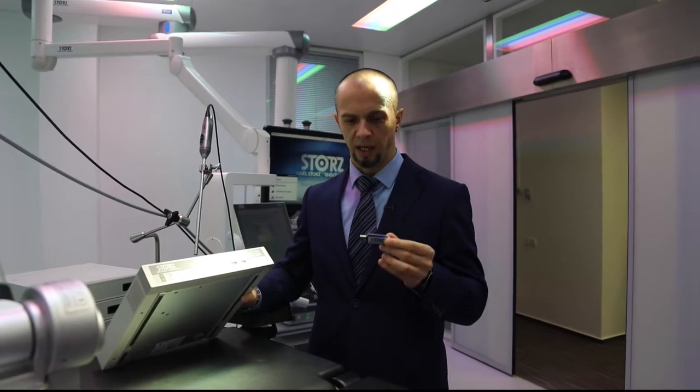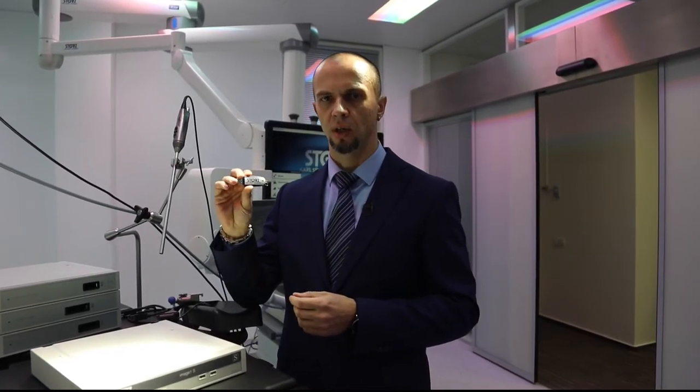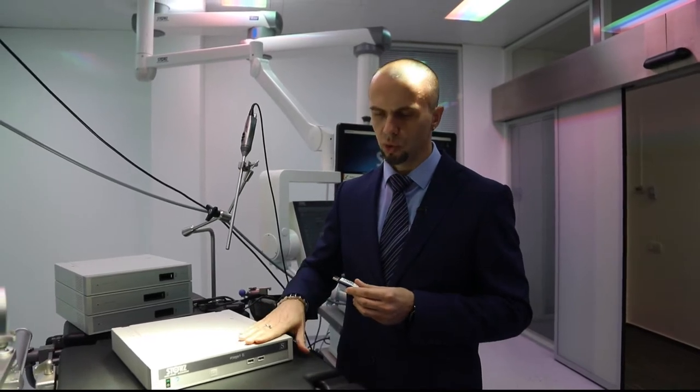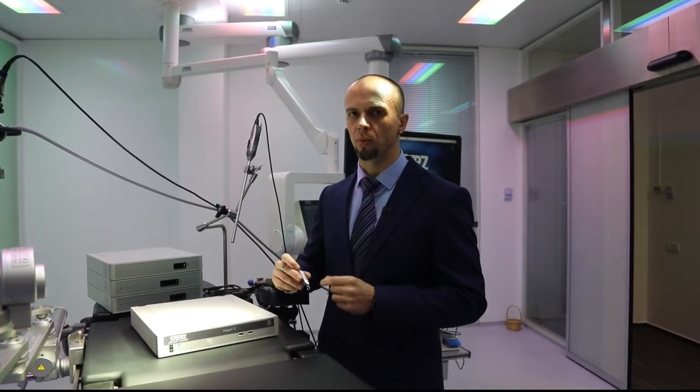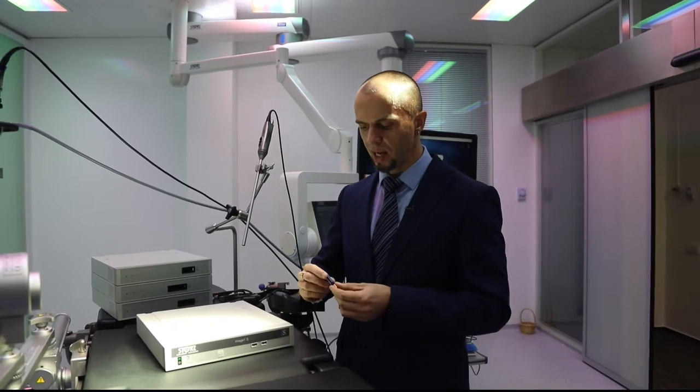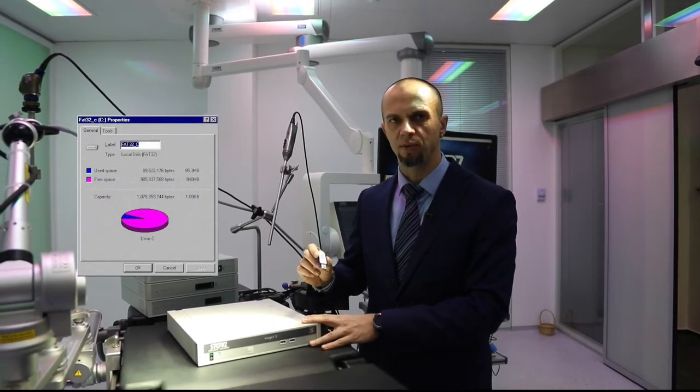USB-разъёмы на передней панели предназначены для наших флеш-накопителей. Когда вы берёте родной флеш-накопитель из поставки и вставляете его, система его увидела и готова к работе. Часто возникает вопрос: можно ли использовать обычные USB-накопители не штортцевские? Мы гарантируем стопроцентную работу только с нашей флешкой, но использование бытовых флешек тоже допустимо. Флешка должна быть отформатирована в файловой системе FAT32.